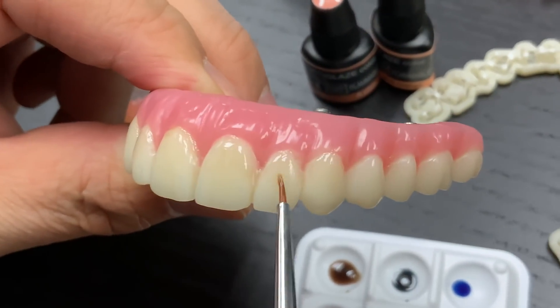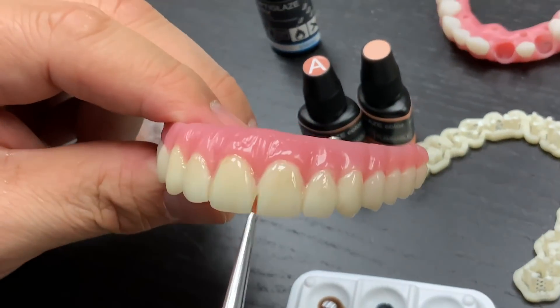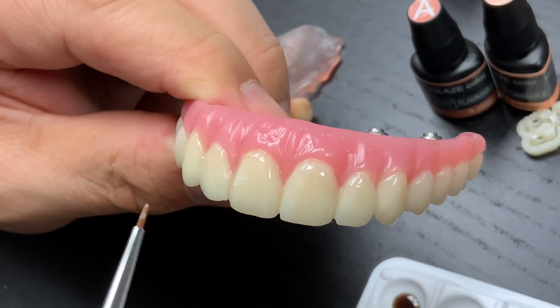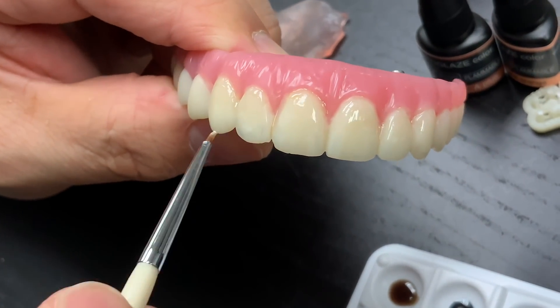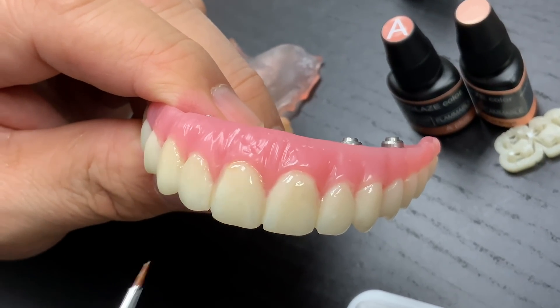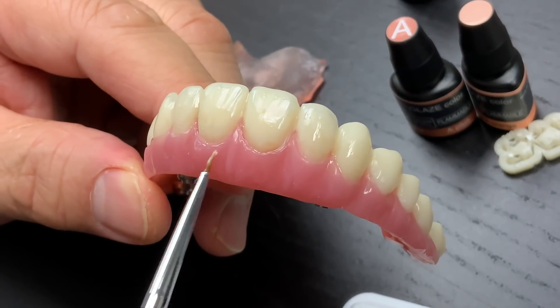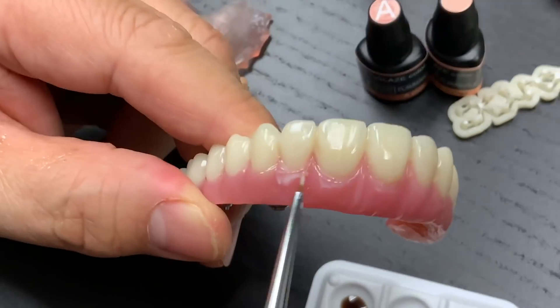Here is the canine. Basically six units — we're almost done. Then using a white horizontal line just a little bit in between the teeth — like this. If it's too much, then add a halo. A little bit horizontal line — a simple technique to match the dental teeth and make it better. You want to add mamelons? I can put a little mamelon here. Also another tip: if you want to go to the gingival area and make it a little bit wider, you can create a slightly wider effect. So we maximize the digital denture — digital implant actually.